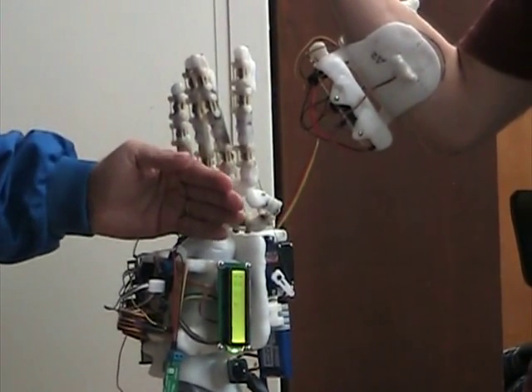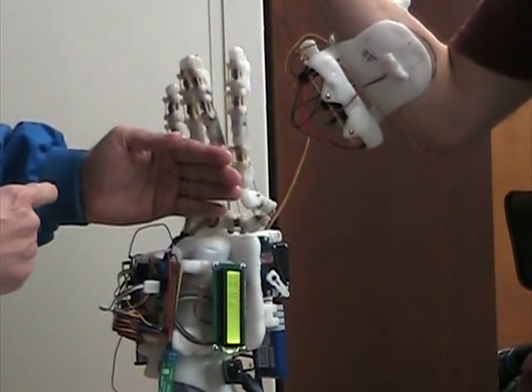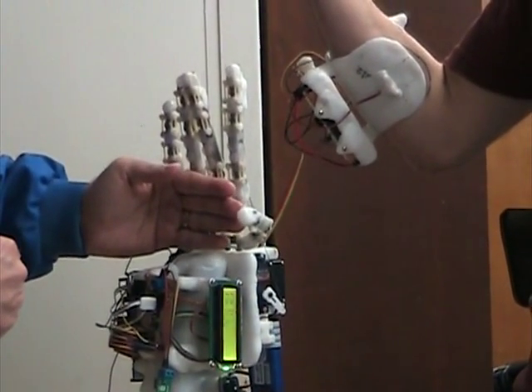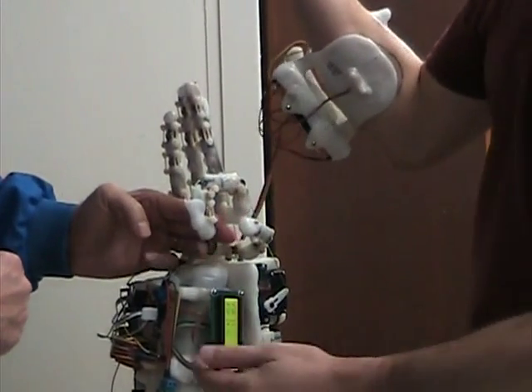So you want to grip it — try to grab it. Is force feedback on now? Yeah. So it'll grip kind of soft. Yeah, until you push it out. Go ahead. So now I changed the finger by accident.